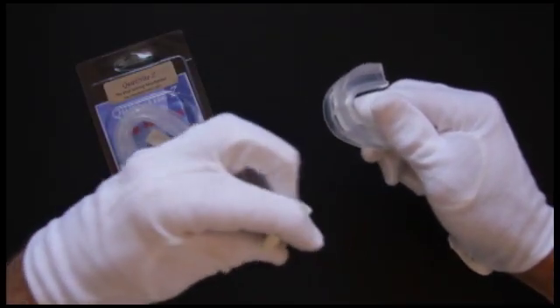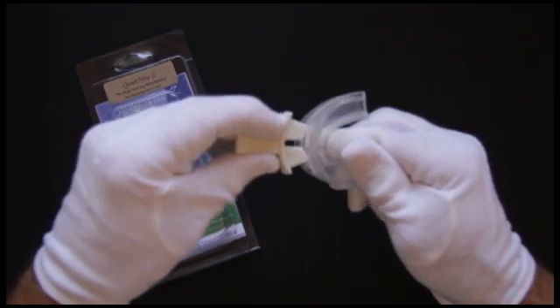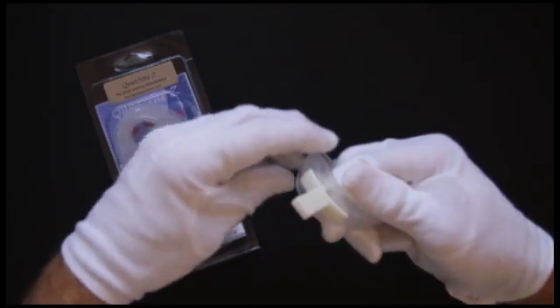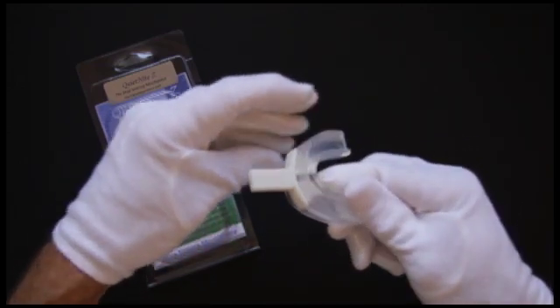To fit the QuietNightZ, you must first insert the white airway plug. Snuggle it into the front of the mouthpiece, and this remains in place during the fitting process.